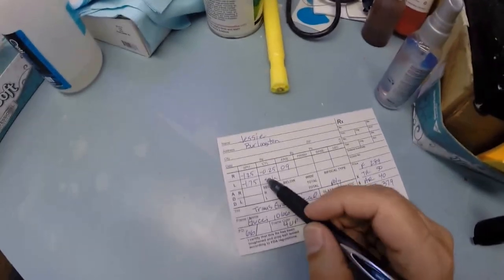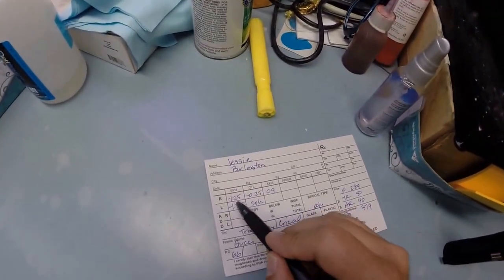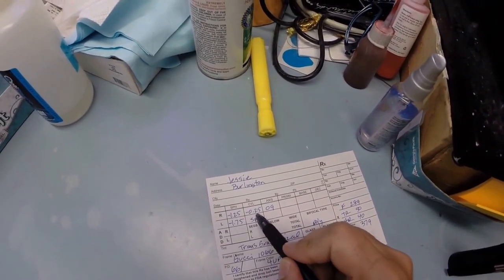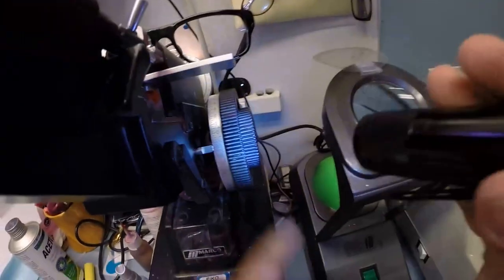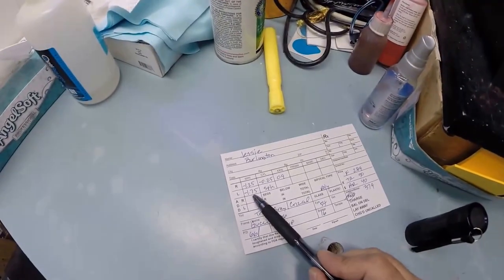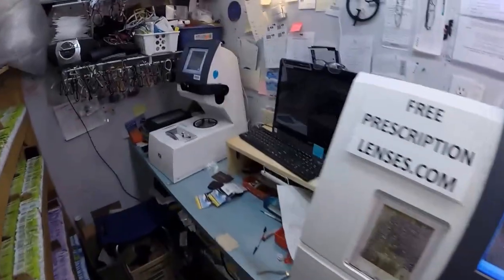Let's check your astigmatism correction, of which you have the smallest amount, 0.25. And when we turn it, we end up with minus 1.50, which is exactly halfway between 1 and 2. Jesse, you remember high school algebra where you have to add two like signs together? Yeah, don't worry. I've forgotten everything I learned in high school algebra too. Let's use today's terminology. Someone had borrowed $1.25 from you, and then they borrowed another 25 cents. They would owe you $1.50. That's where we're at. Minus 1.50 in the red. Now your left eye is going to read to be a total of minus 1.75 total. And we'll check that when that comes out.